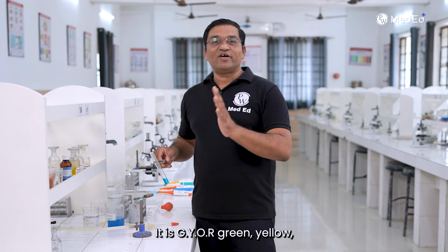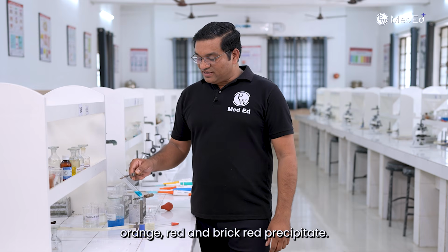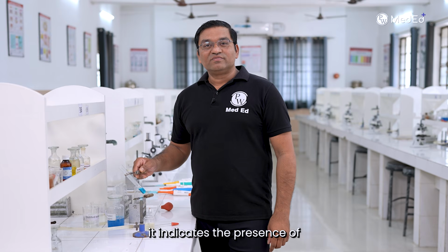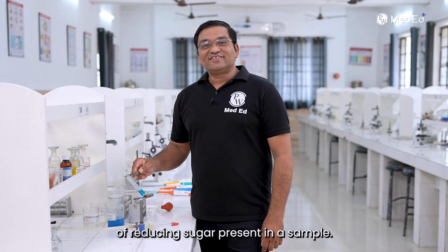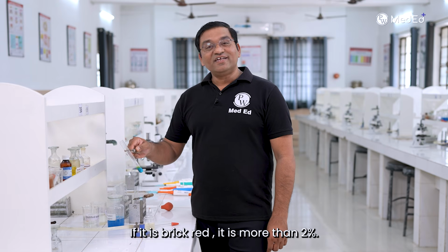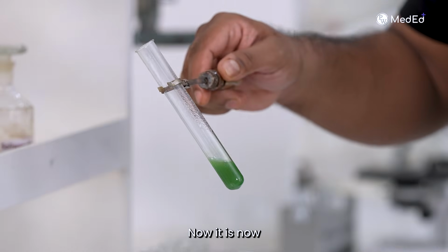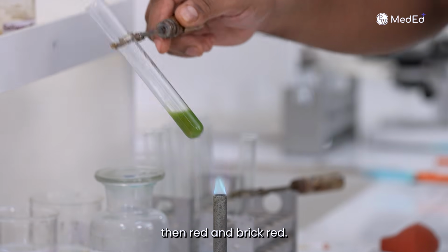It is GYOR: green, yellow, orange, red and brick red precipitate. Depending upon the color formed, it indicates the approximate quantity of reducing sugar present in a urine sample. Green, yellow, orange, red are 0.5 gram percent, 1 gram percent, 1.5 gram percent and 2 gram percent. If it is brick red, it is more than 2 gram percent. See the change in color. Now it is green. Now it is moving towards yellow, then orange, then red and brick red.